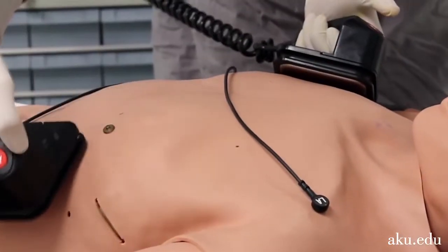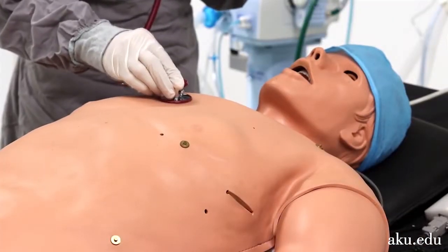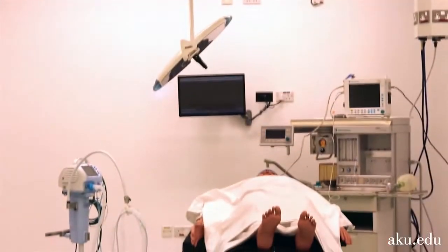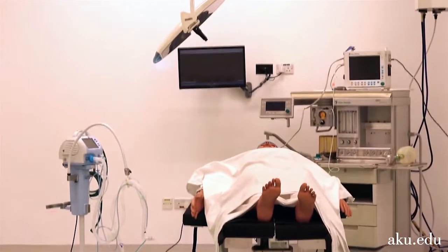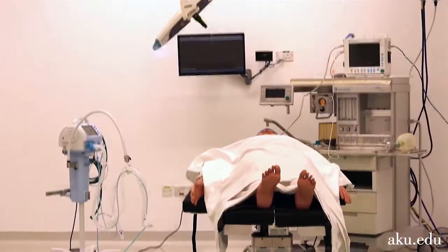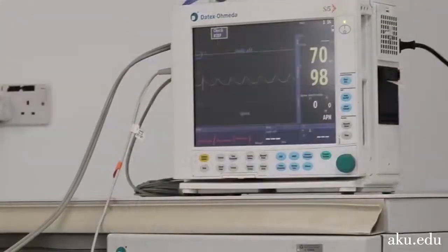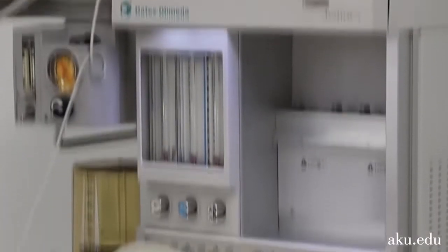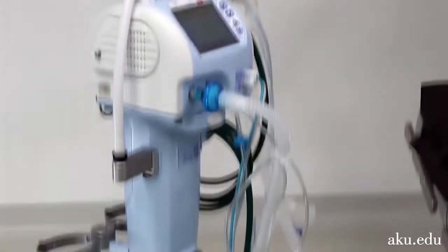It can generate a realistic respiration cycle by triggering a negative pressure reflex. This technology allows the HPS to be compatible with external life support devices, ventilators, oxygen masks, and anesthesia systems.